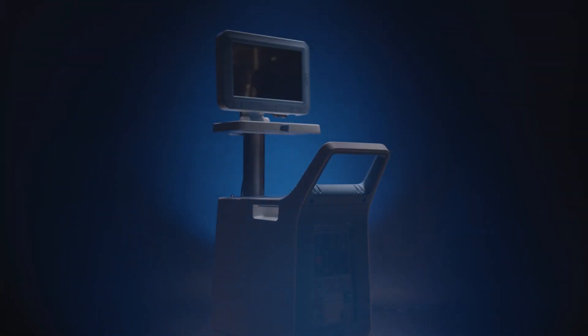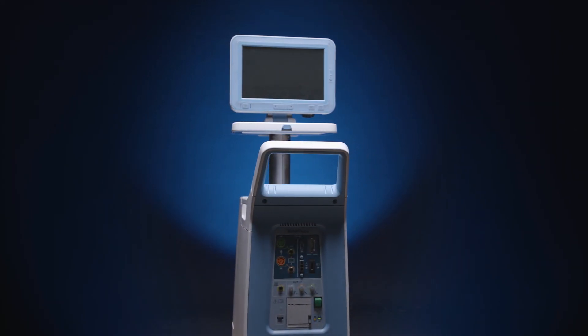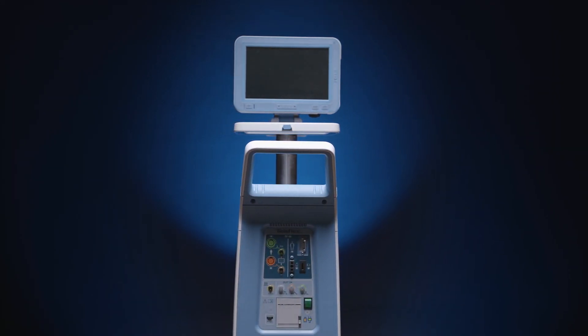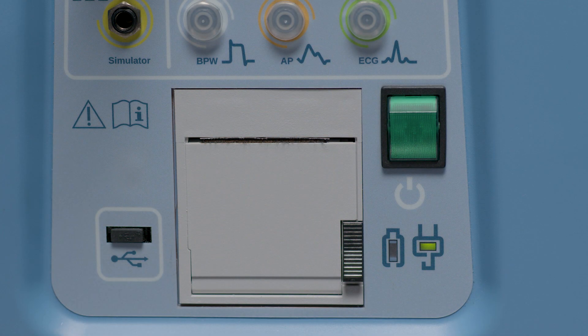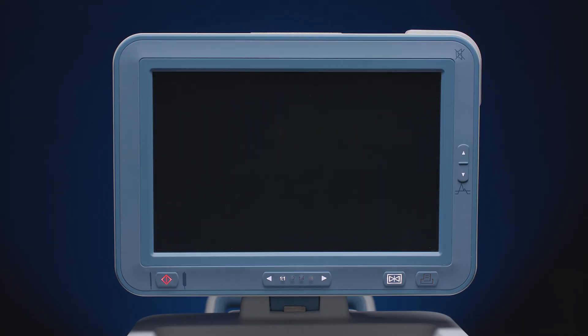This video reviews the basic startup of the AC3 Optimus IABP for conventional IAB insertion. To ready the pump, connect AC power and turn power on. The AC3 Optimus series system starts up in autopilot mode by default.